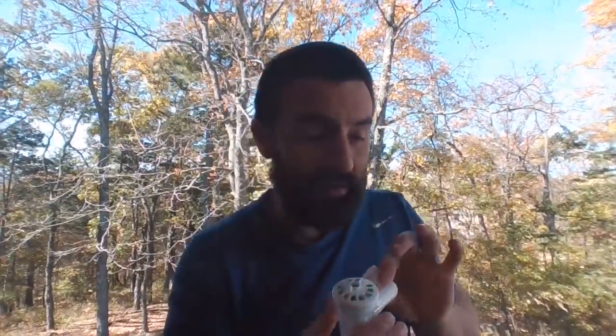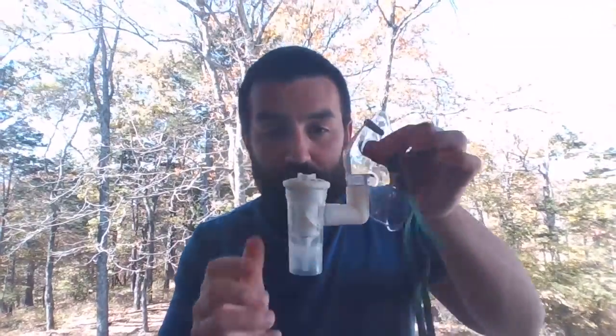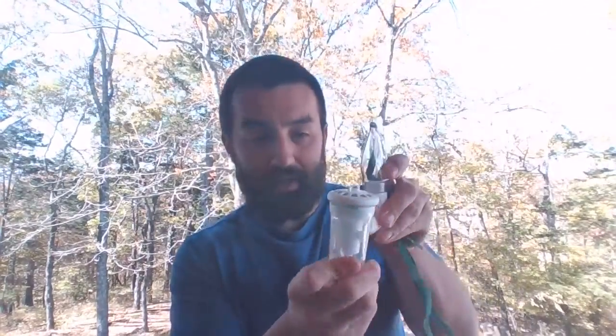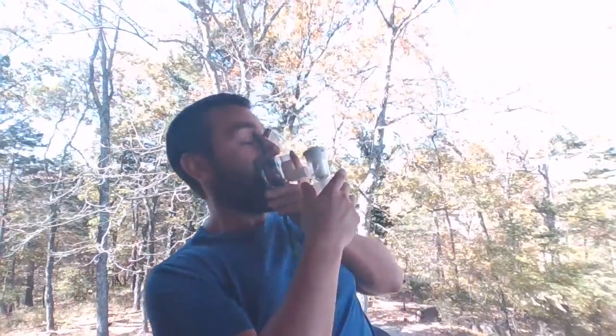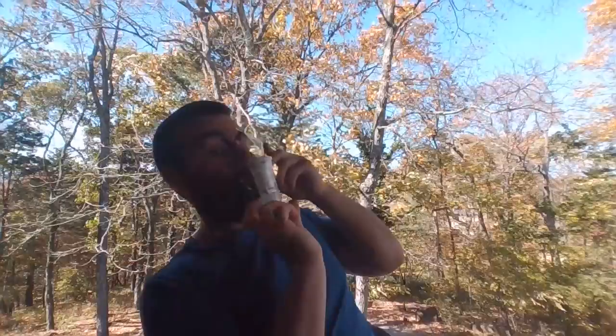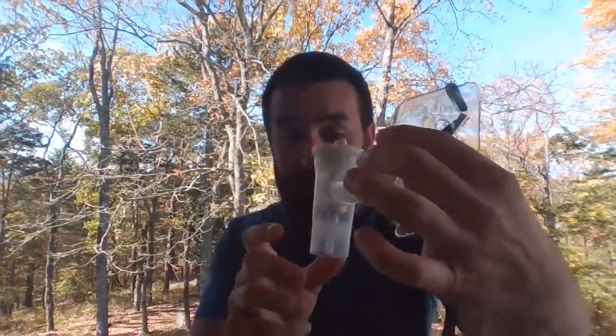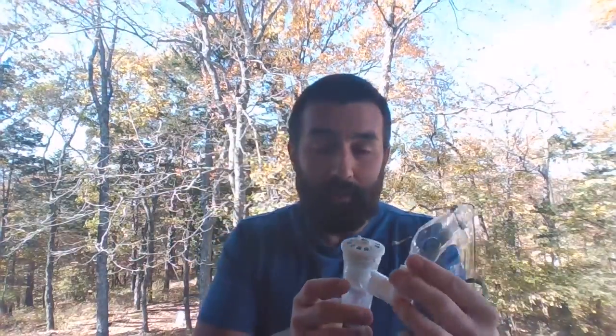I try and get them sitting upright, but sometimes you can't. It gives you the ability to get that thing sitting flat so you don't have as much dead volume. And then that just hooks straight onto this aerosol mask here. So once again, let's say I'm sitting like this, and it's like this. I have the ability, all right, to turn this valve. I can make all sorts of articulations, and what you want to see is that nebulizer completely and perfectly upright when you're running it for a patient.